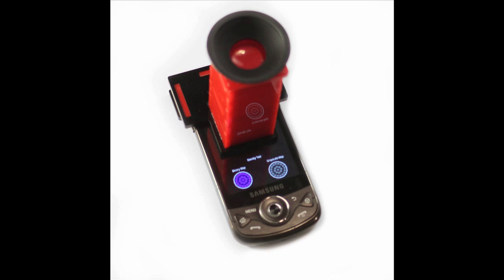Early cataract onset is difficult to diagnose. We present a device for measuring cataracts, which is highly portable and collects quantifiable data to help tackle a global health problem, making it ideal for the developing world.